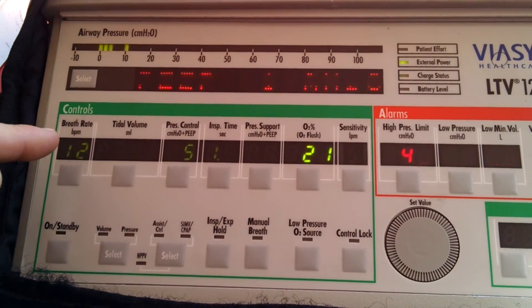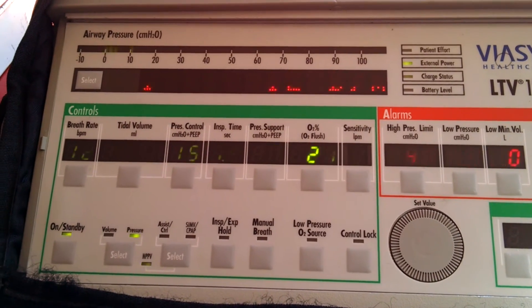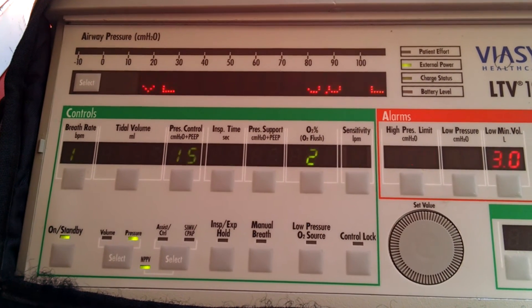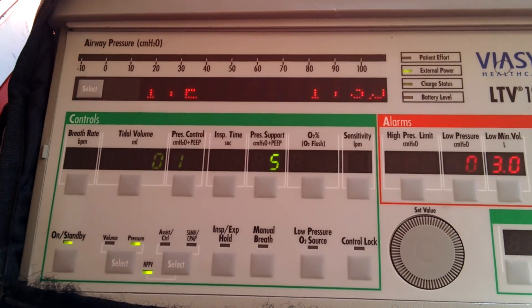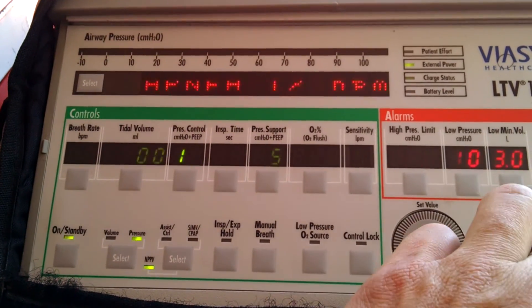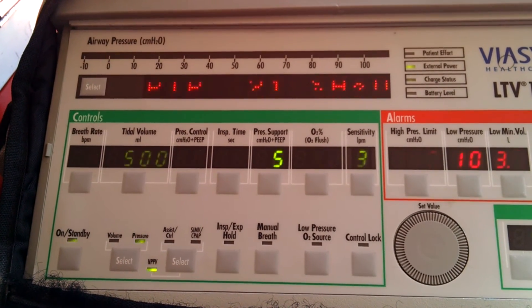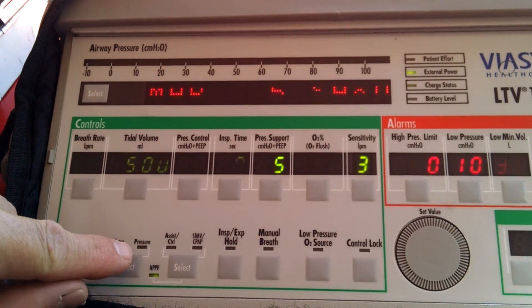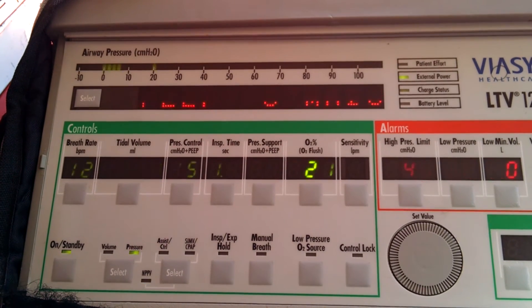There will be a backup breath rate initially of 12, although if the patient's breathing spontaneously on their own, they will determine their breath rate. There's no reason to set the I to E ratio - the patient's going to determine that - nor is there any reason to set the tidal volume. Apnea will alarm if the patient's breathing under 12 times a minute. The volume and pressure actually set themselves when you're in the NPPV mode.